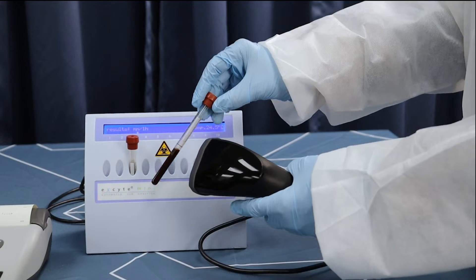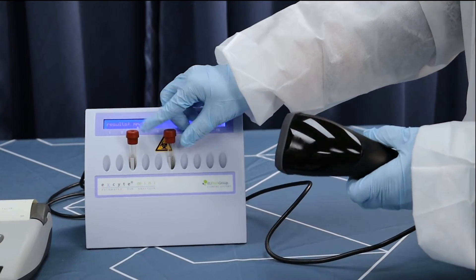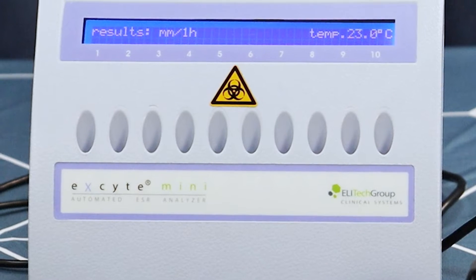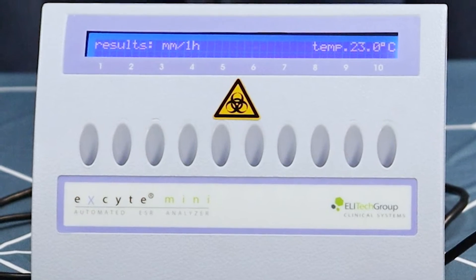The barcode scanner allows you to quickly scan patient identification, saving your lab time while ensuring accuracy. Automatic temperature correction normalizes results so temperature is not an influencing factor.